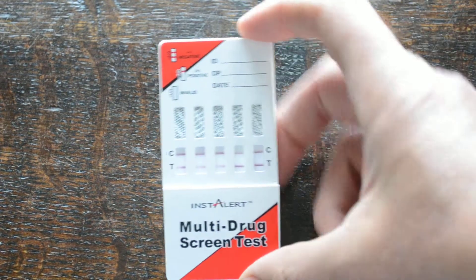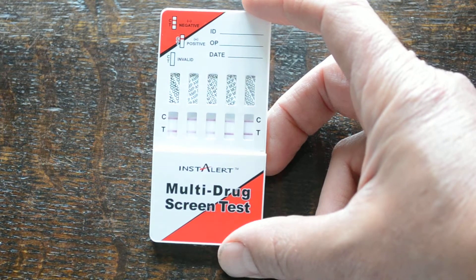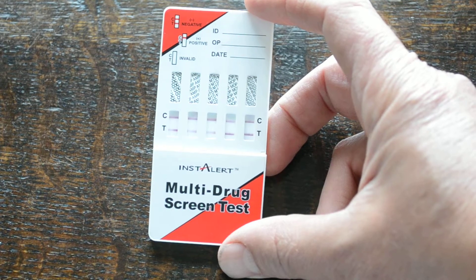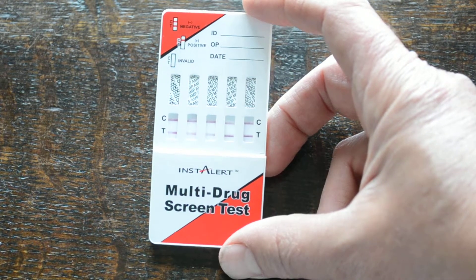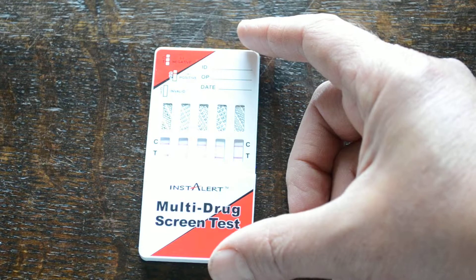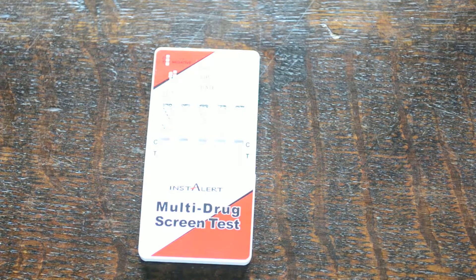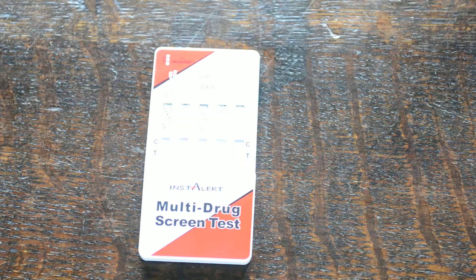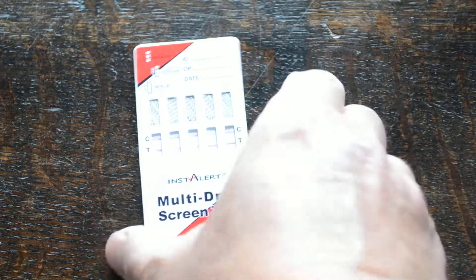As with all drug tests, the color density, saturation, and thickness of the test lines will vary between membranes and between tests — this is perfectly normal. You must interpret a clear negative result for any test line, no matter how thin or faint. Do not try to interpret 'just negative,' 'just positive,' or 'is it or isn't it' — if you've got a test line discernible at the read time, that is a clear negative result. So there we go — the Instalert brand of drug testing kits, this five panel combination screening for cocaine, opiates, methadone, benzodiazepines, and amphetamine.